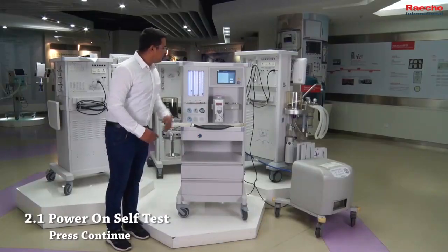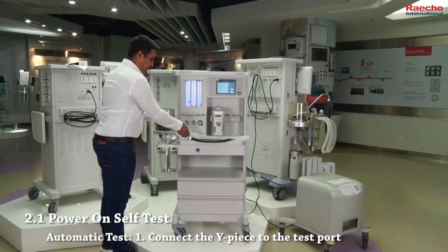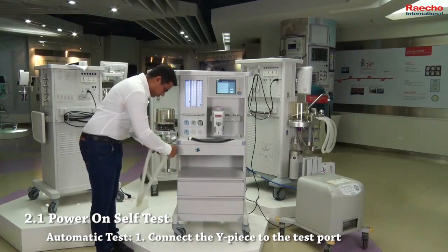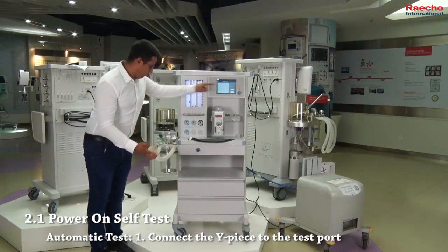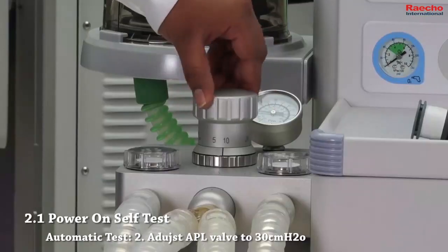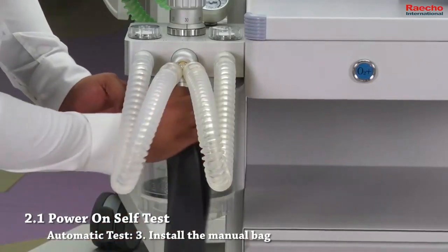Press continue to go to automatic test page. Please follow the instructions displayed on the screen. Step 1. Connect the Y-piece to the test port. Step 2. Adjust APL valve to 30 cm H2O. Step 3. Install the manual bag.